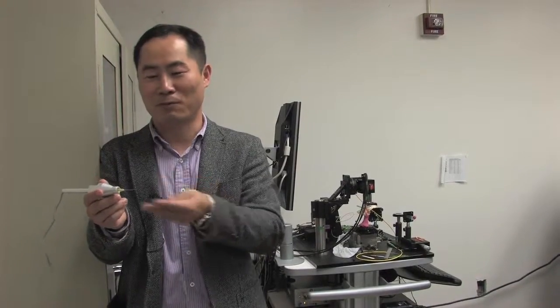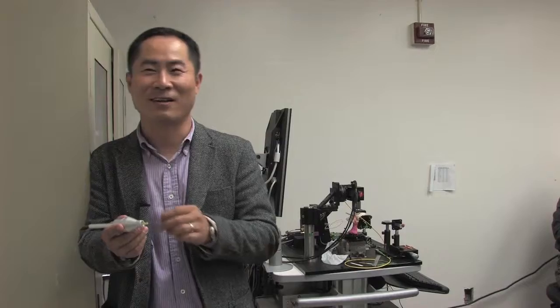A simple motor plus the OCT probe, we could make those very difficult procedures very accurately. We are hoping this would be in the hands of doctors in hospitals pretty soon.